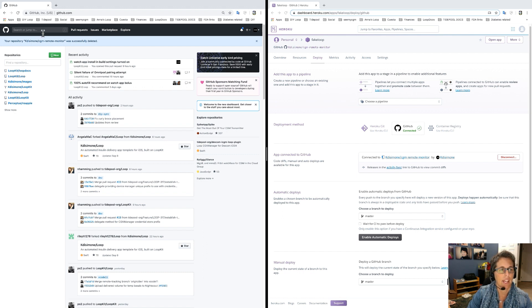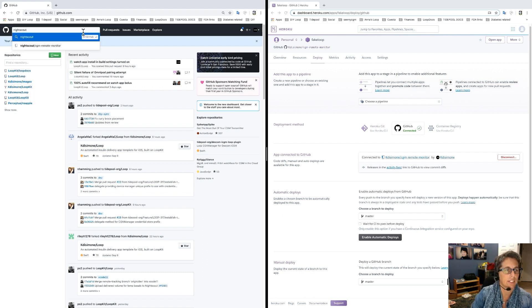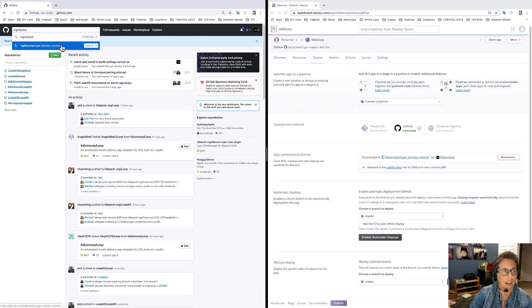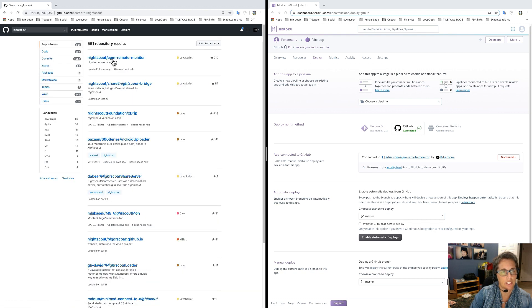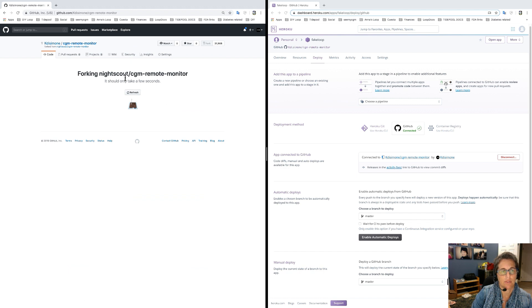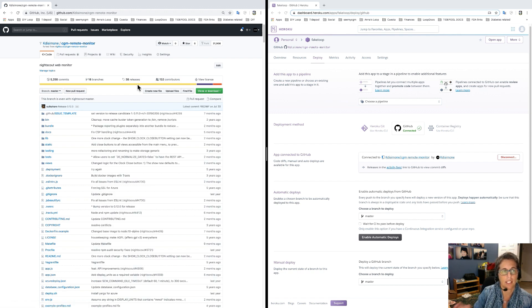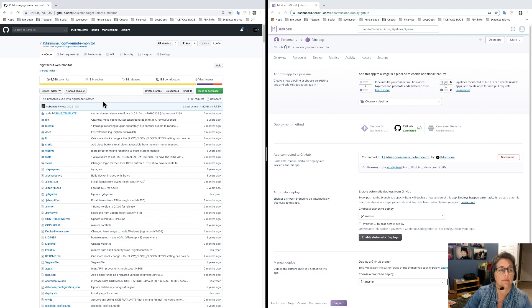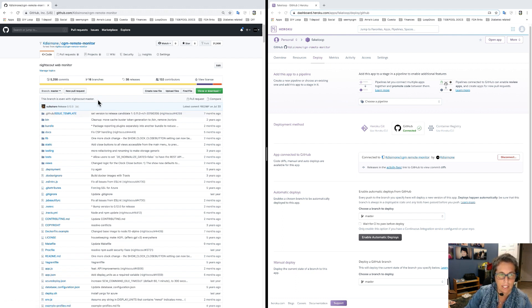It's all fine — you haven't broken your site, don't worry. Then go up to the top and search for Nightscout cgm-remote-monitor. If it doesn't come up automatically, search all of GitHub; if you just search 'nightscout' you'll find it. Click on it, and you'll see you're at the URL for nightscout/cgm-remote-monitor. Click Fork — it'll only take a few minutes. What you've basically done is grabbed a brand new fork, which is always exactly up to date. You can see it says 'even with nightscout master' — that means it's all up to date.